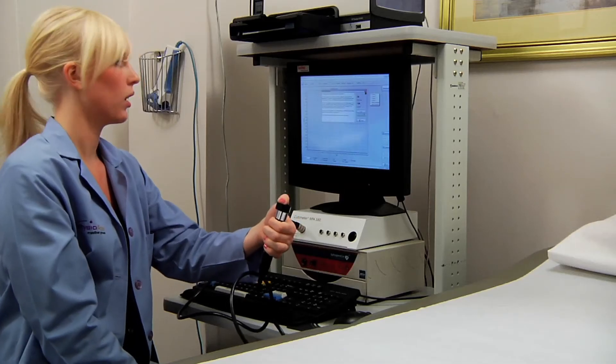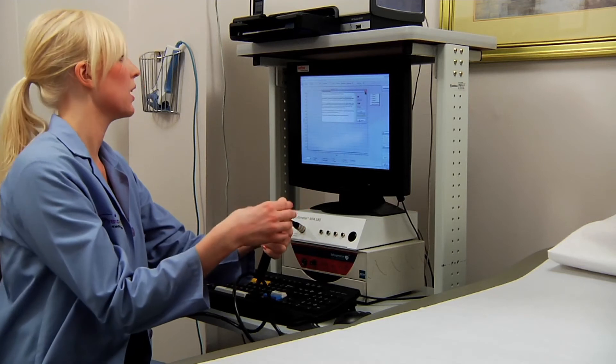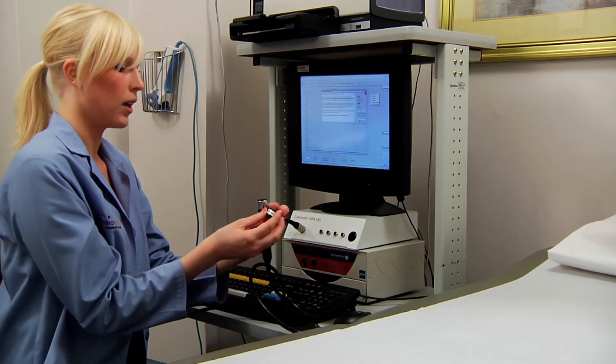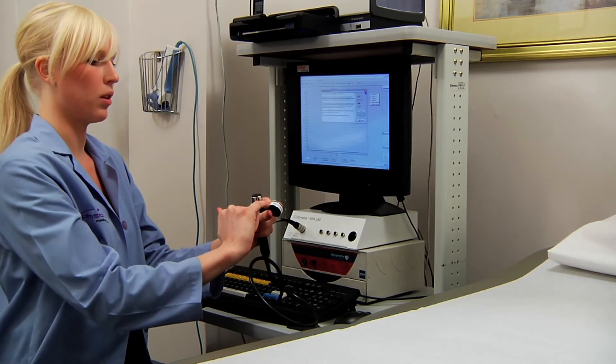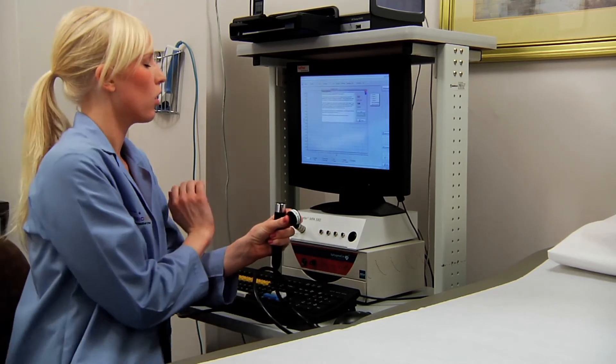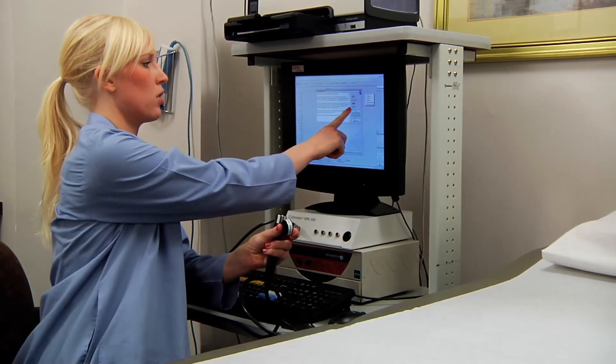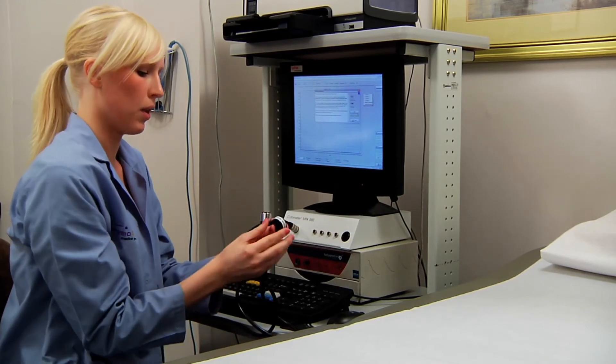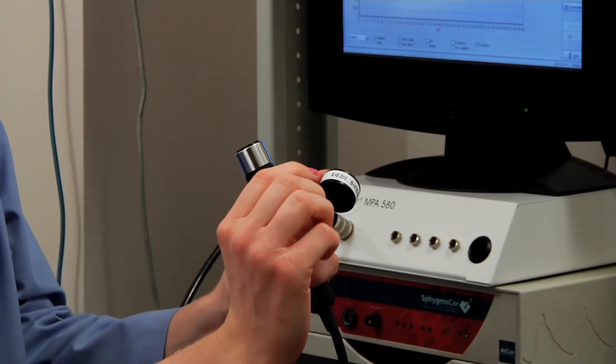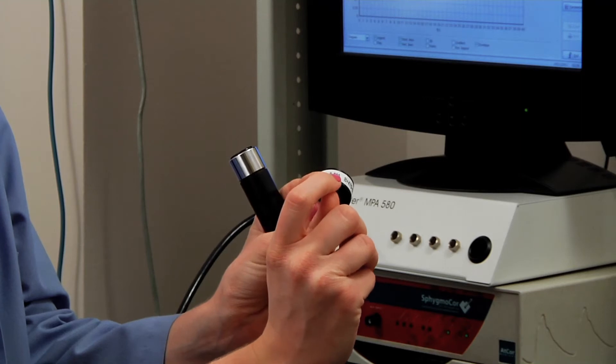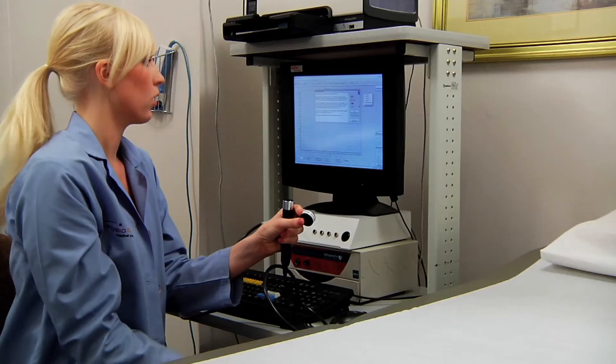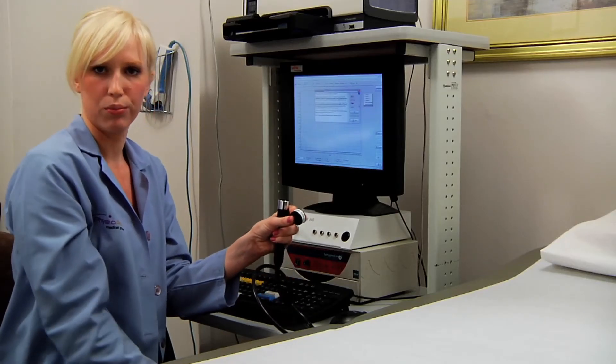As soon as it's done calibrating, you're going to compare the displayed measurement value with the value on the A cap. It's on the cap and it's under the letter A. The calibration value is 106. I look at my calibration cap and it says for letter A, I should be within 0 to 200. Since I'm at 106, I'm calibrated properly.